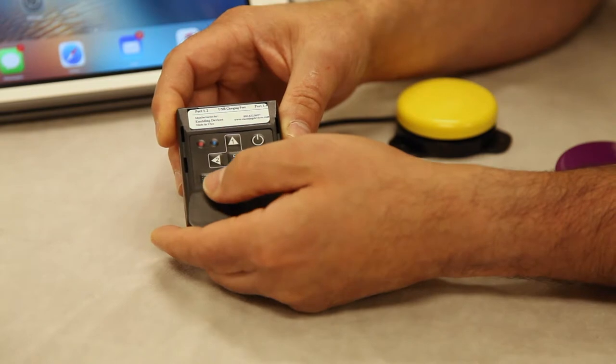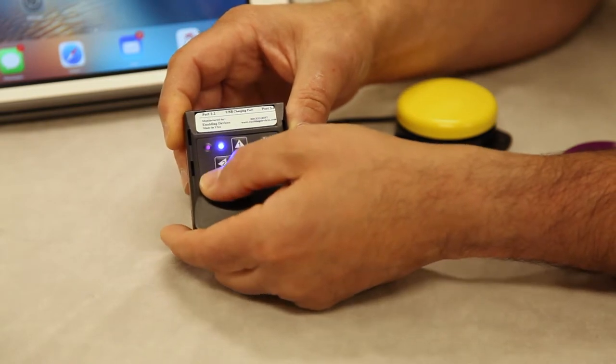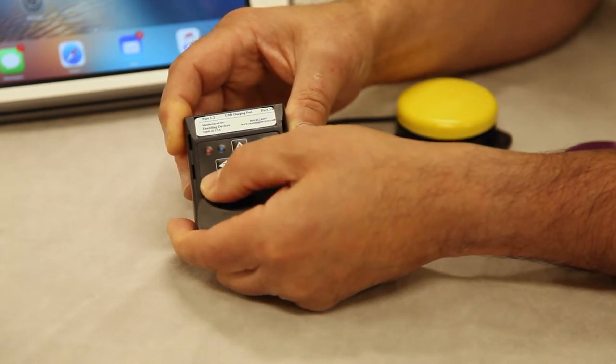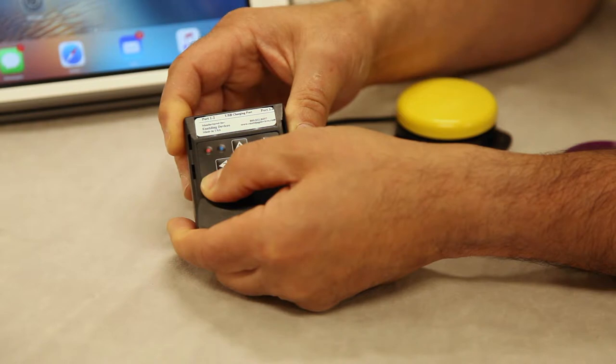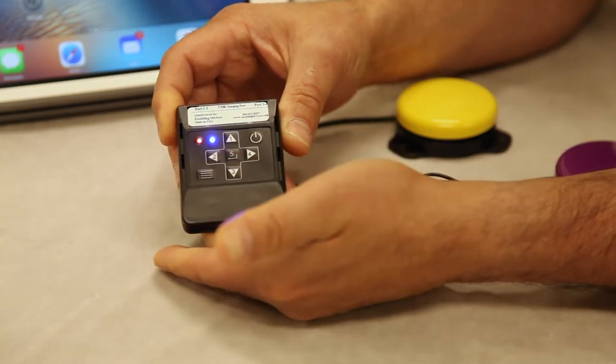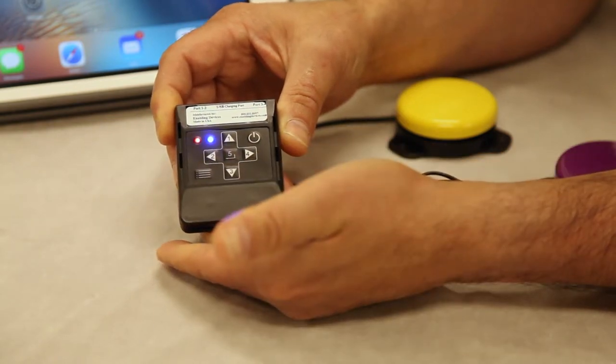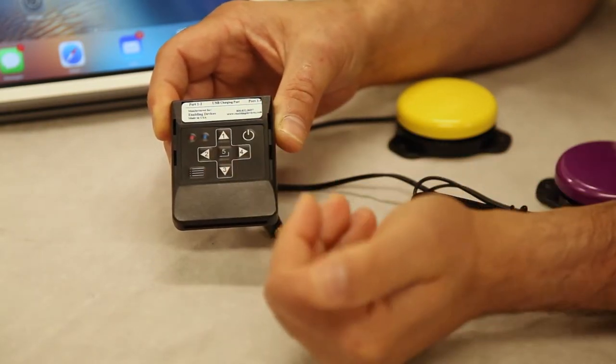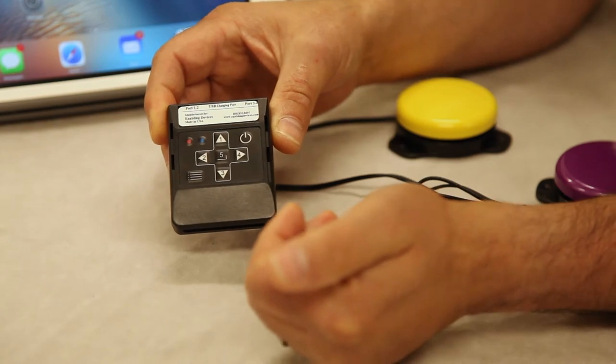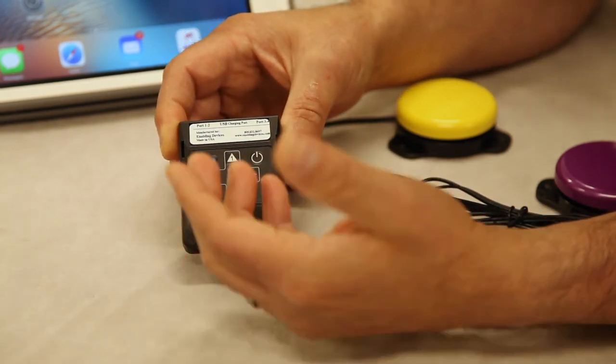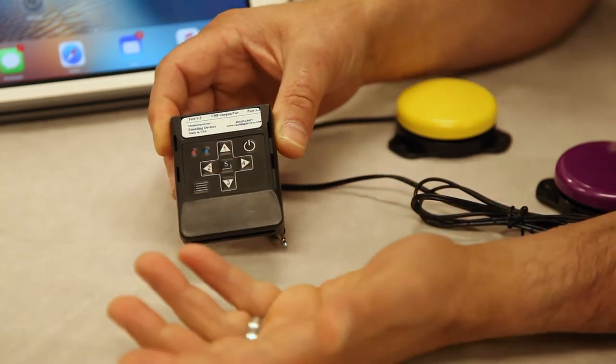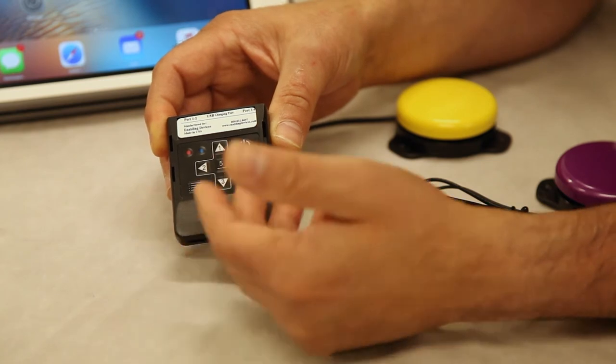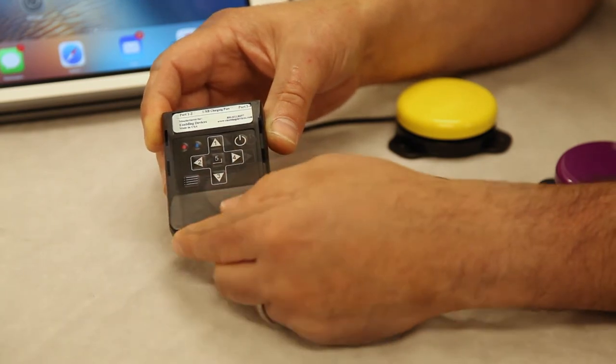1, 2, 3, 4, 5, release. So you'll get both lights to flash the same amount. If you made a mistake and you went too many numbers or too low, just redo it again, nothing's going to happen.